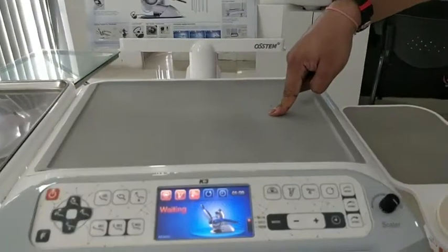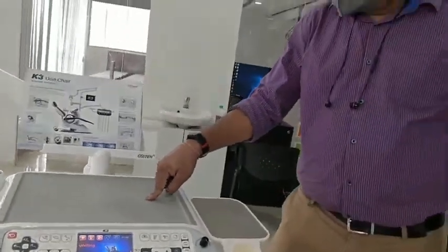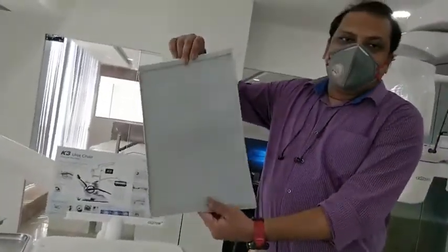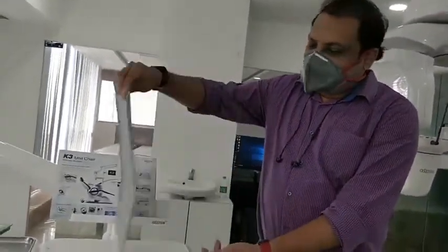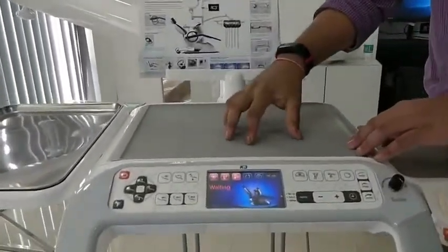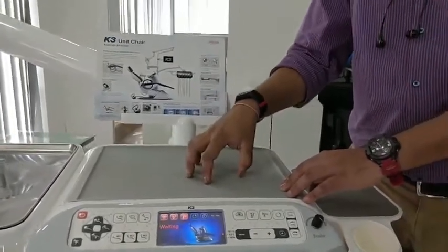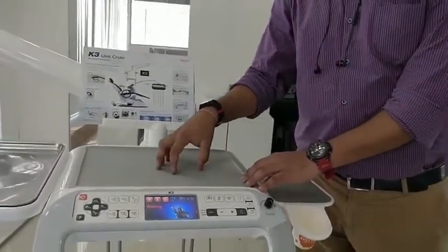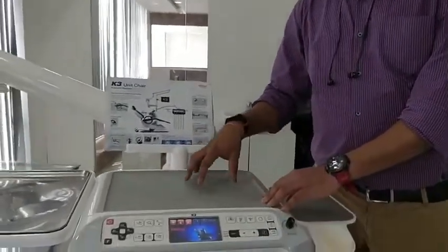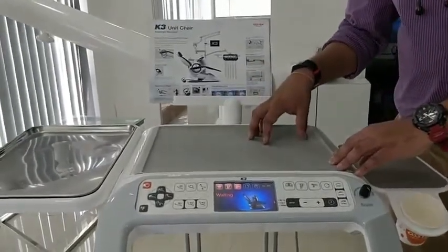There is also a tray for normal dental procedures like composite filling and crown cutting. The special feature of this tray is the rubber mat, which creates an anti-skid surface so instruments won't skid and fall off — it holds the instruments in place so the doctor won't harm expensive instruments.